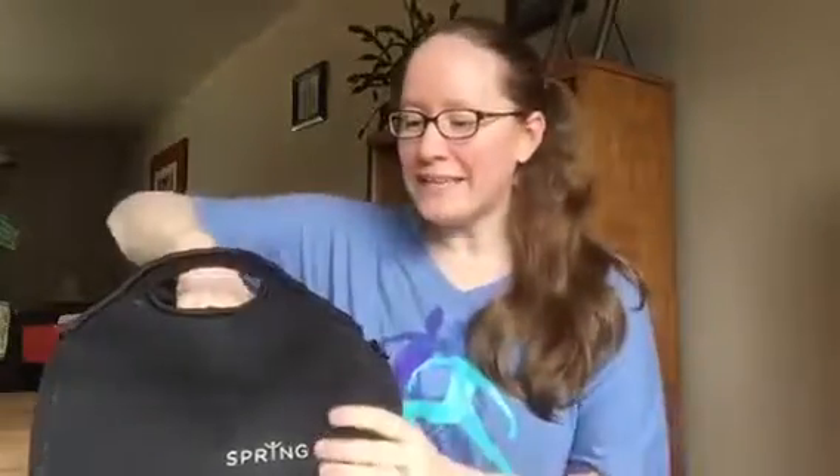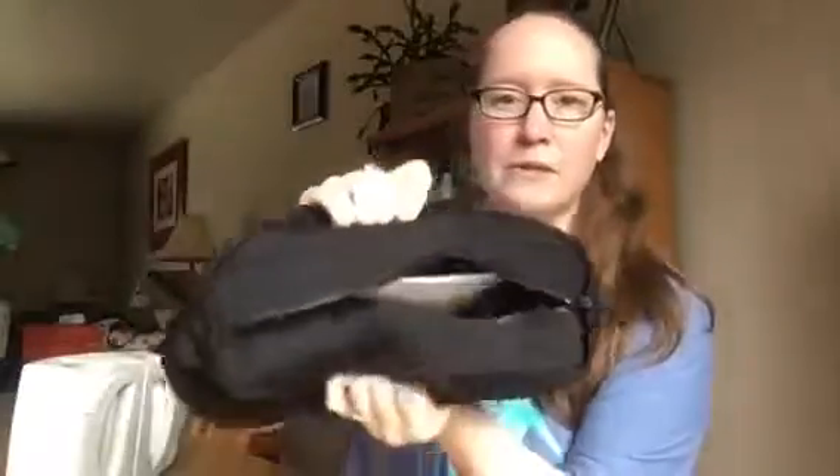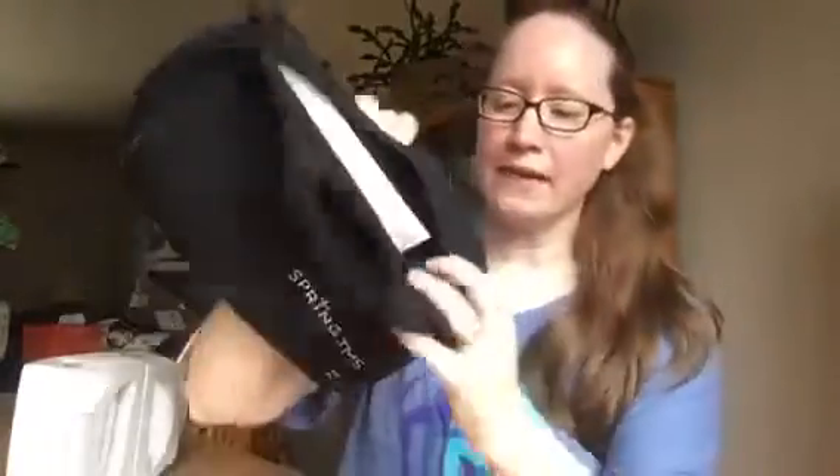Hi, it's Kelly. I want to talk about the TMS device and how things have changed and improved in the last week since it's been in my possession. I'm renting it. This is the bag — it's neoprene, with a pocket for the adapter that fits really snugly, and it's actually waterproof, which is really important for this device.